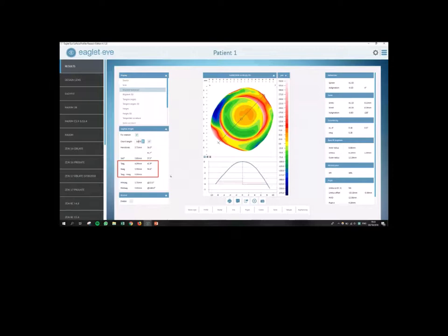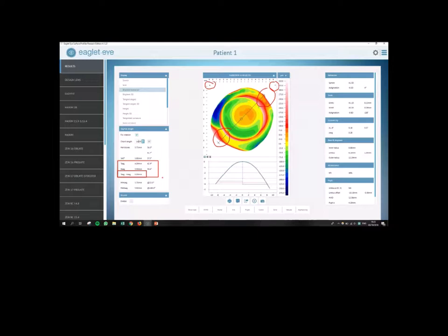Depending on what diameter lens I want to order, I'm going to type in that chord length again. So in this case, let's go for 16 again. So now what I'm going to look at is the comparison between the temporal sagittal height and the nasal sagittal height, which is this area and this area up there. So everything on the left side of this eye is nasal. Everything on the right hand side is the temporal side. As you can see down below, it is showing up with a difference of about 600 microns, 590 microns.